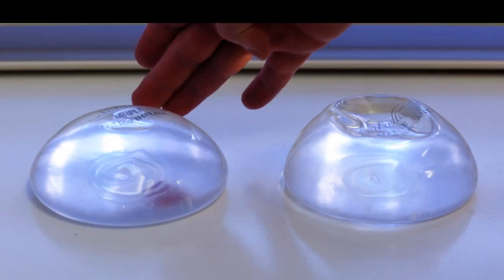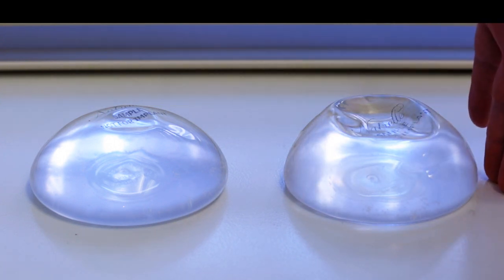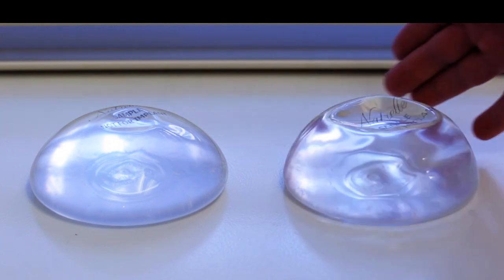Here we have our new Inspira breast implant from Allergan. It's sitting next to, on the right side, the traditional softer fill gel implant from the same company.